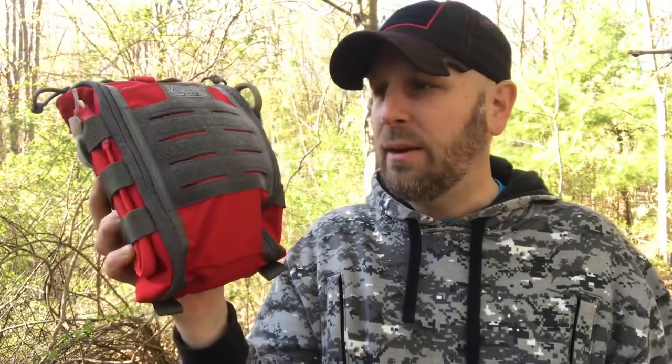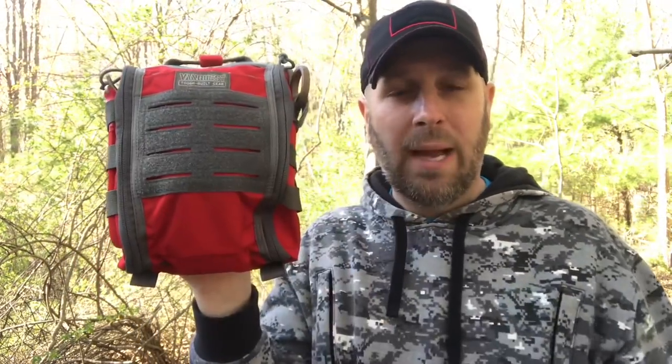You can see it's got that little red Velcro or hook and loop up there. If you want to put a big medical patch on the front you can do that. Let me turn the camera around so we can get a close up. I'll talk through what's in the pack as well as some of the features of the organizer.